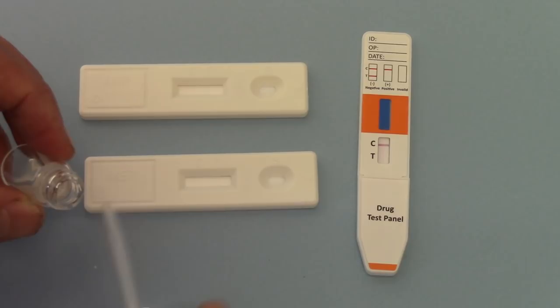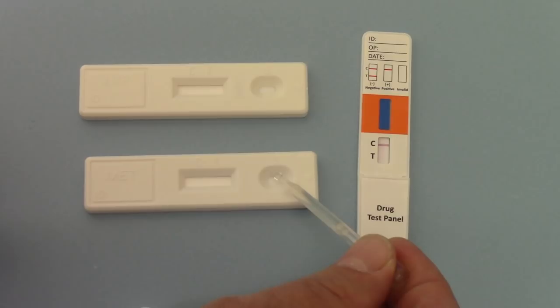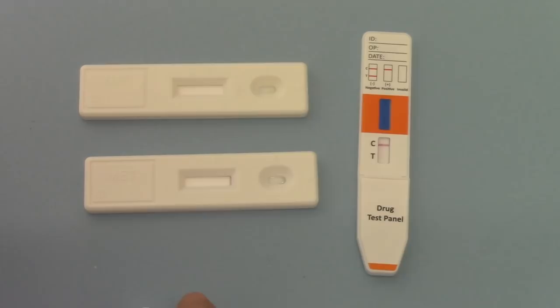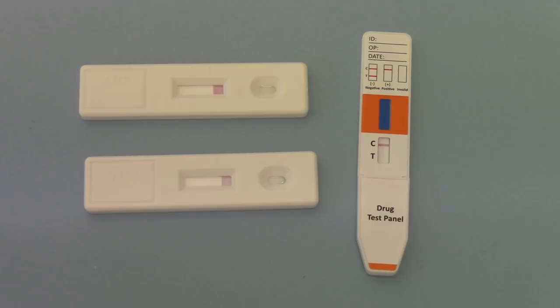What I'm going to do with the pipette is sample my buffer and add three drops to each cassette, and you'll see now that those test membranes are running.